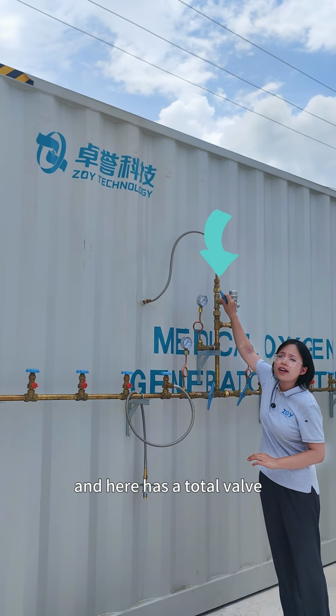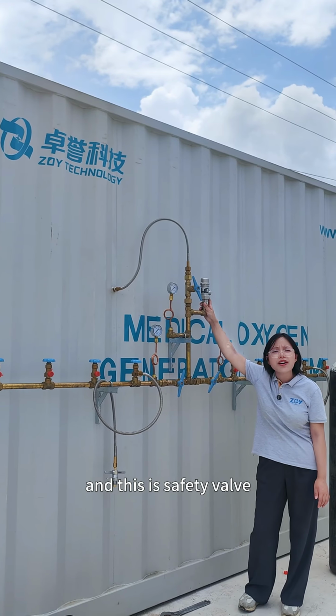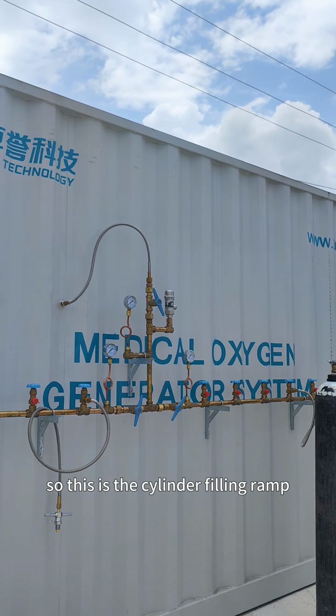And here has a total valve. If we stop the refilling ramp, we can close the valve here also. And this is the safety valve. The safety valve will discharge the oxygen once the pressure is higher than a certain value. So this is the cylinder filling ramp.